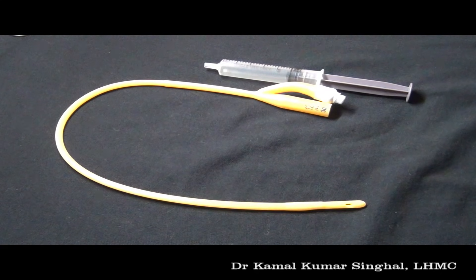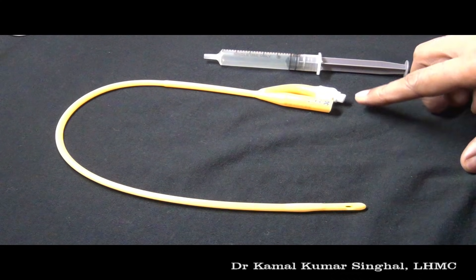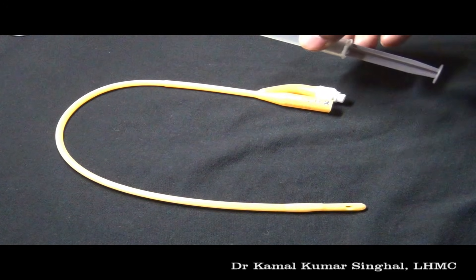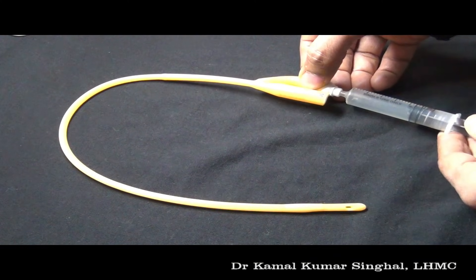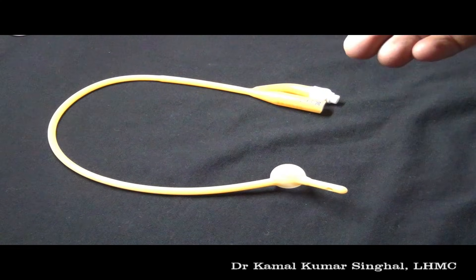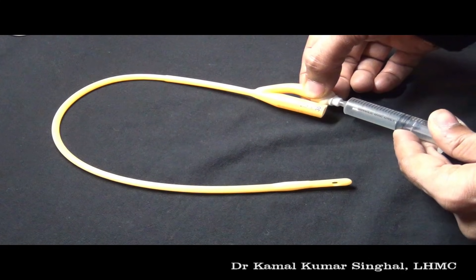This is a Foley's urinary catheter. This end is inserted aseptically into the patient. This is the balloon port, which is used to inflate the balloon, and this is the urine drainage port. The balloon port has a valve which opens only when a syringe is connected to it. A syringe filled with distilled water is used to fill the balloon. When the Foley's is to be removed, the syringe is used to remove the distilled water and the catheter can then be easily pulled out.